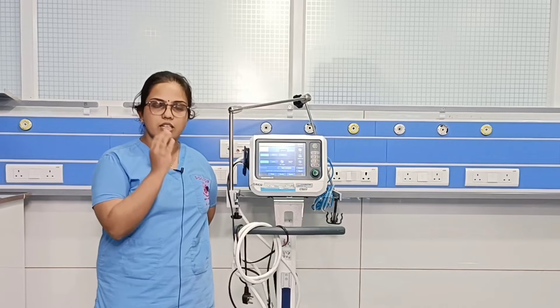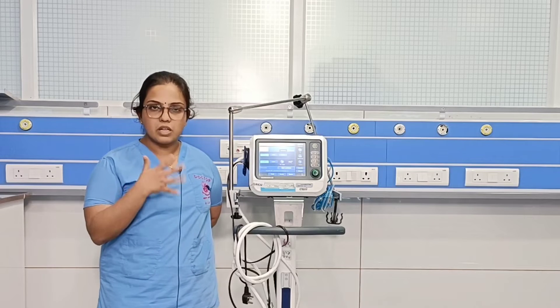The basic mode in this scenario is Control Mechanical Ventilation, or CMV, also known as Assist Control mode. Here, the entire breaths are provided by the ventilator and patient effort is not a criteria. It is used in a completely paralyzed and sedated patient.